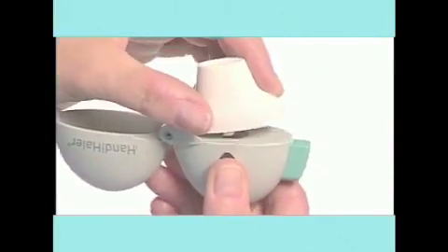To dispose of the empty capsule, open the mouthpiece, tip out the used capsule and dispose of it. Close the mouthpiece and the lid.